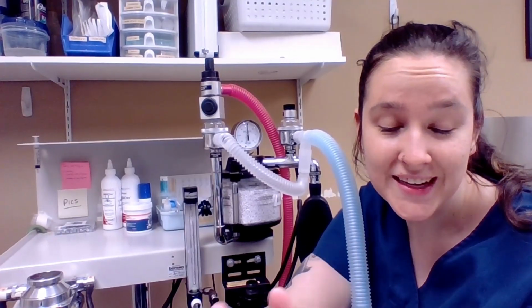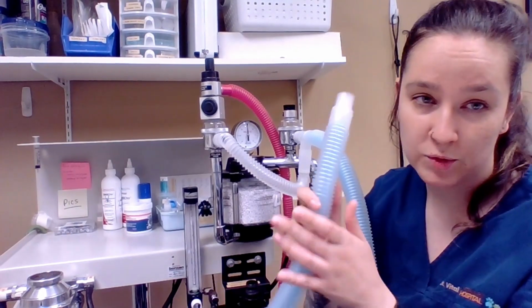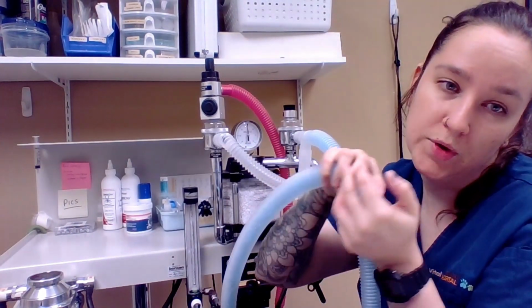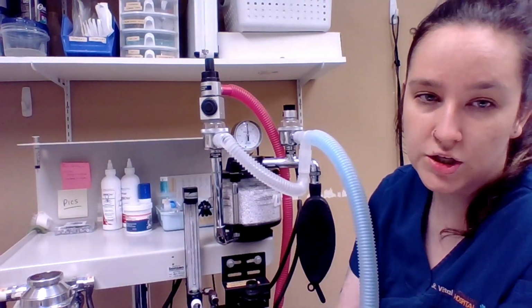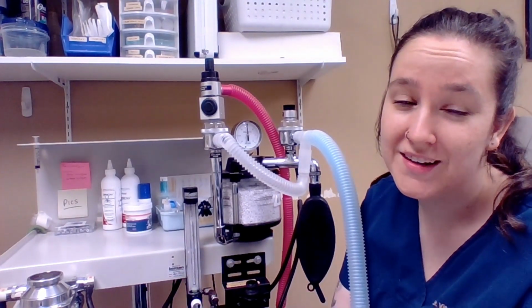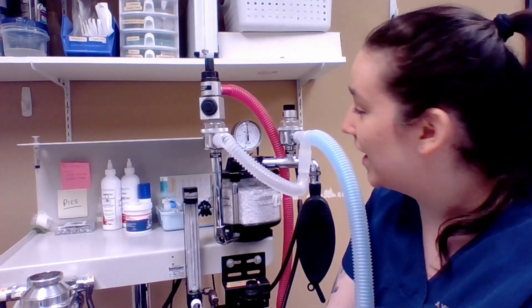Okay, so we are going to be leak testing our rebreathing circuit, our F circuit, today. I am going to cover off the end of the tube with the palm of my hand just to stop the whole flow of oxygen. I will tell you, I did this immediately prior to filming, and there was a pretty sizable leak, so I'm going to have to look into that.